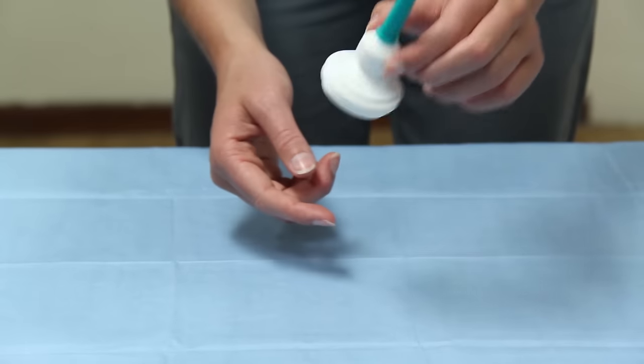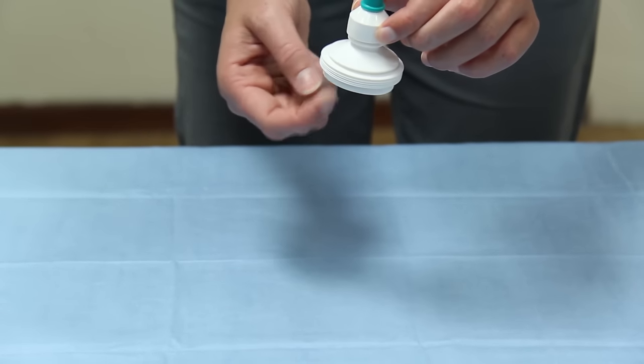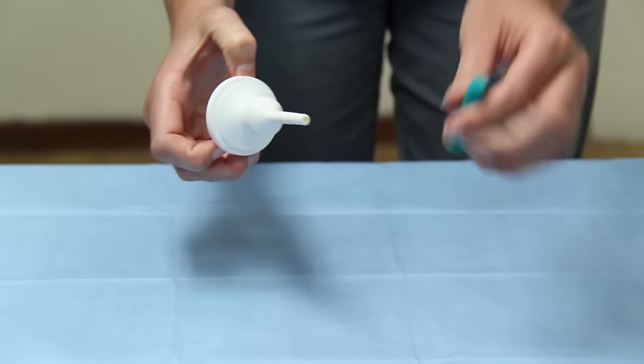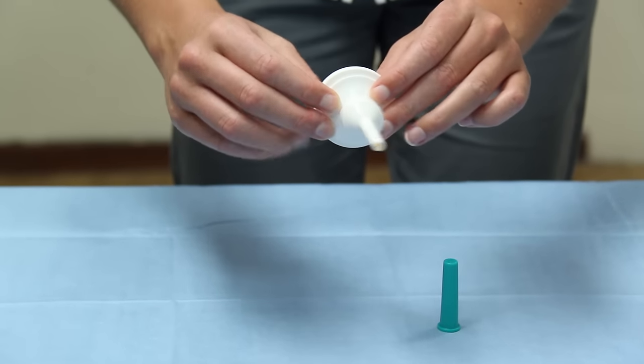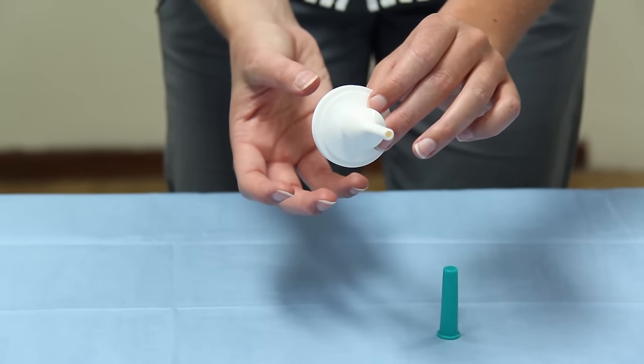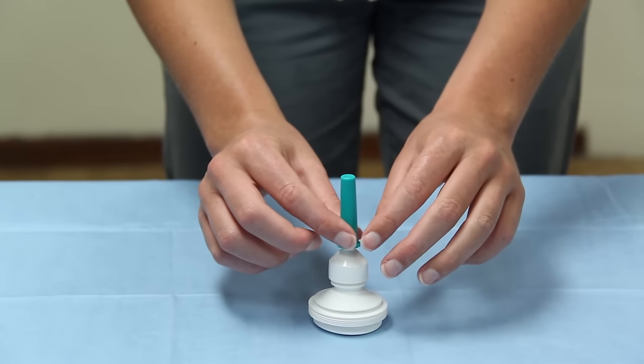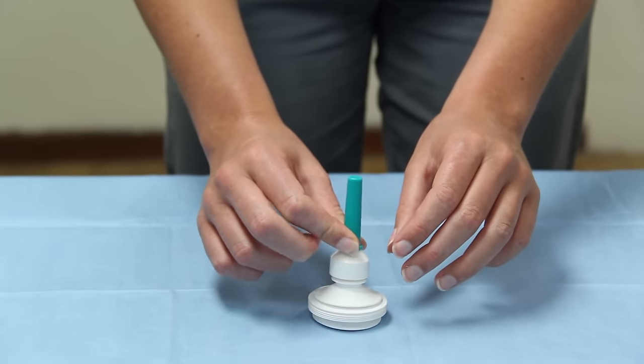Now, as you can see, this has stayed compact and that's because this is a one-way valve, so the enema can only go back out and no content can come back into the reservoir. So it's much easier for the patient to use and not as messy.